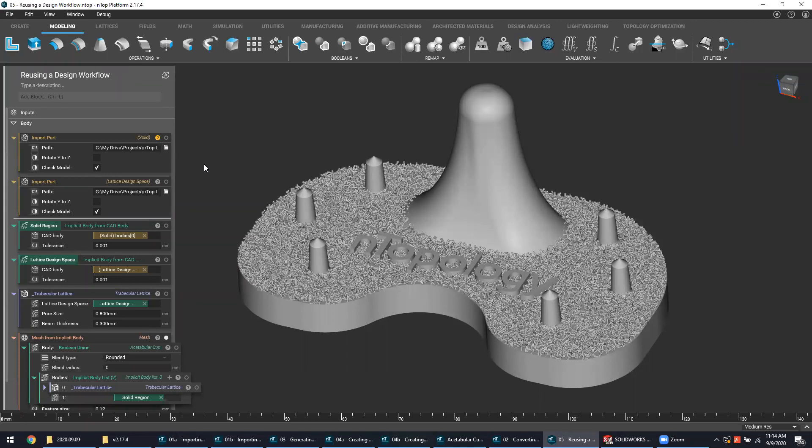The beauty of designing your orthopedic implants in this manner is not just that the complex lattice geometry is fast to generate and really easy to handle, but the design workflow is scalable across entire part families or fundamentally different product lines. And the next step from here is to just introduce automation, batch processing, and we've got a seamless human-free design workflow that just works over and over again.